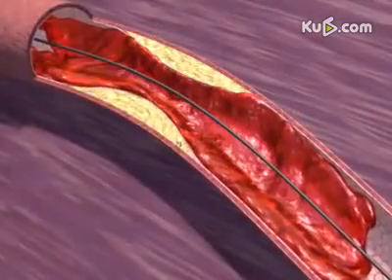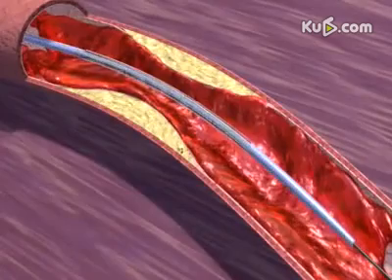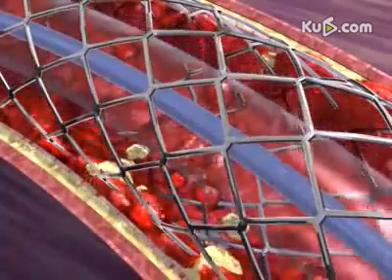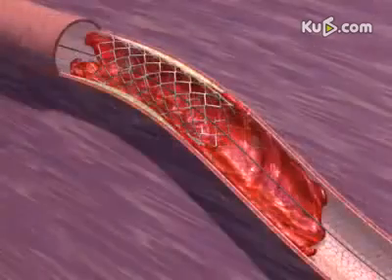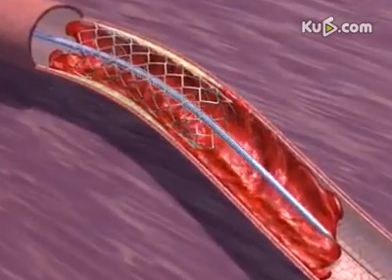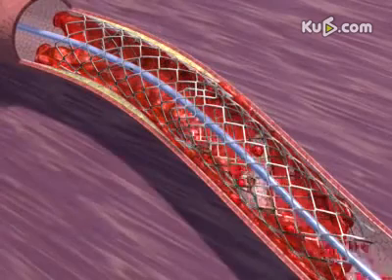Following balloon dilatation, a long atherothrombotic lesion remains. Stent placement compresses the residual clot under the stent struts and causes a cheese-grater effect, resulting in additional thrombotic embolization. Due to the apparent long length of the lesion, a second stent is placed, which also causes some distal embolization.